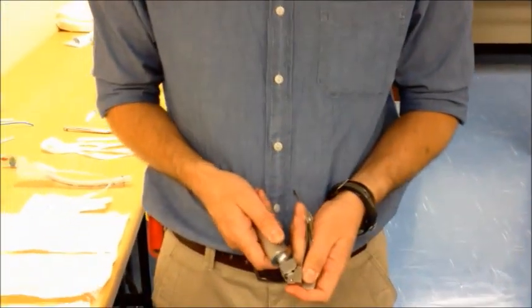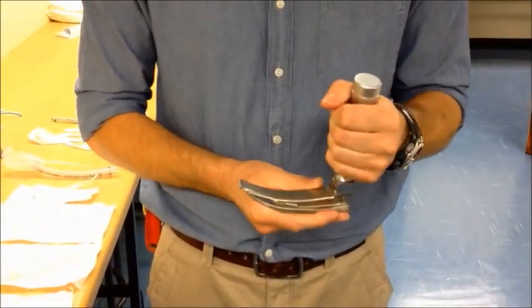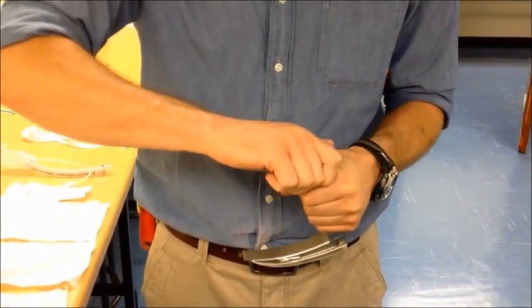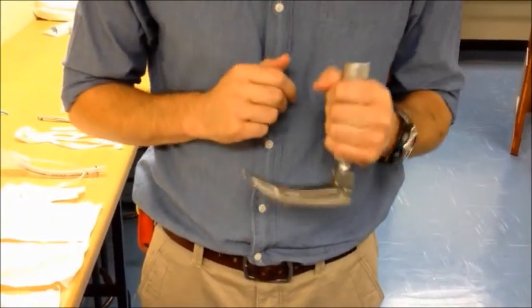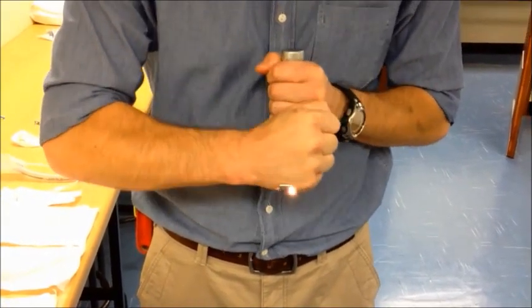Take your laryngoscope and blade and assemble it in the correct manner. Ensure that it works in the position of use which is upside down. The butt cap should be firmly attached and there should be no battery play inside. The light should be functioning even when the blade is stressed.